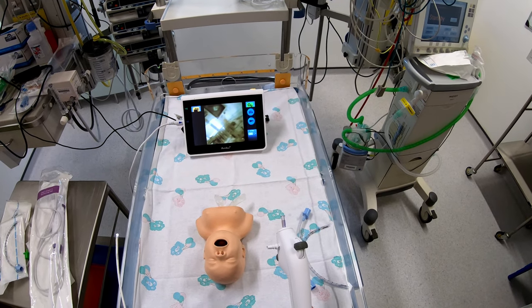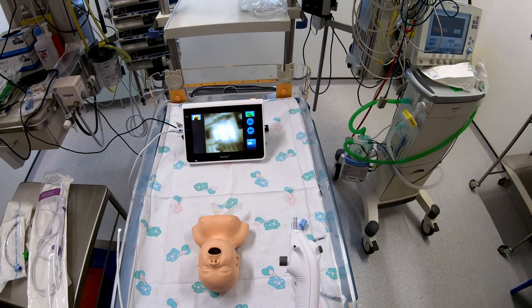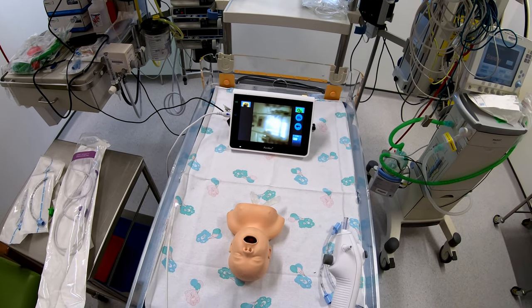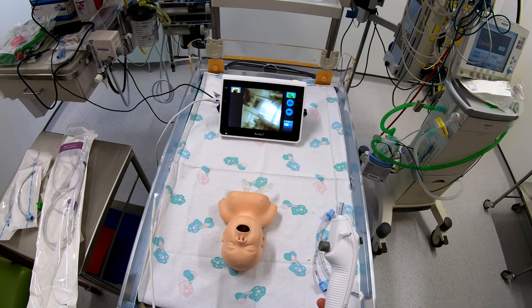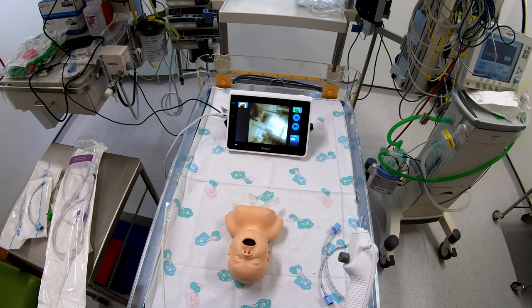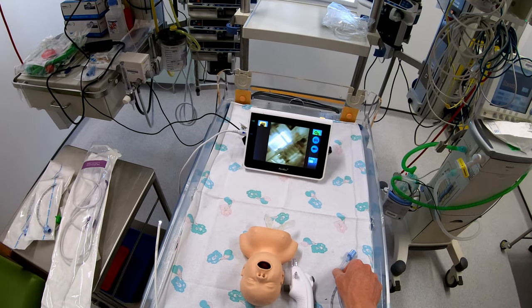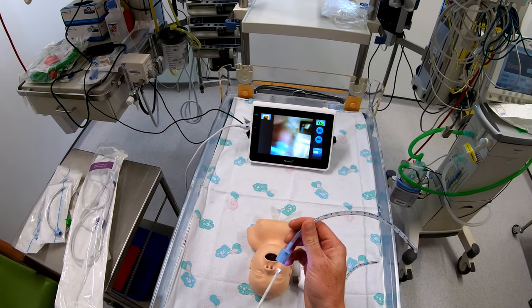I've made a previous series of videos looking at how Ambu's A-Scope 4 worked for intubating children, and I had it on a brief trial and was actually really impressed with it. It worked really well and the image quality was good, but the big limitation it had was the size of tubes it could be used with.